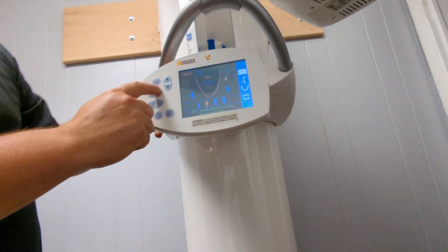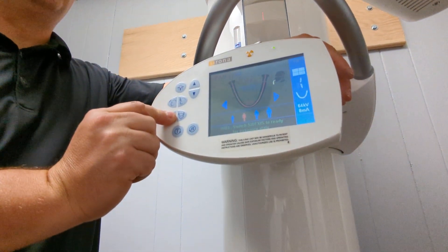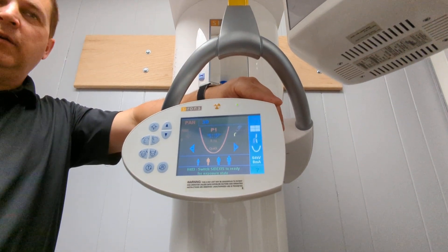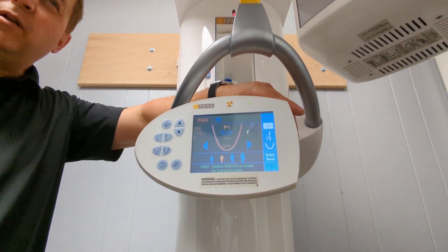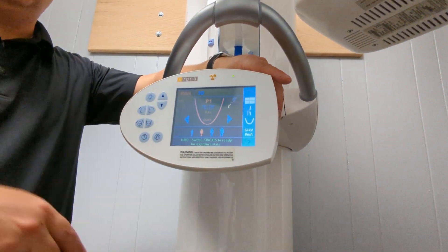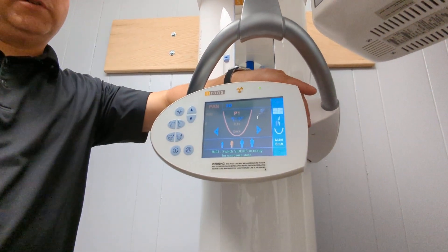You also have the head squeezers. The R key is a reset/rewind button. If you're ever pushing the button and nothing's happening, there's an R key on that box outside too — just hit it one time. If it ever gives you a 301 code, it's asking you to reset it. If you ever get a red error up here, you can always hit the R key to get out of it. These machines get kind of moody — hit the R key and force them. You will go to your room.